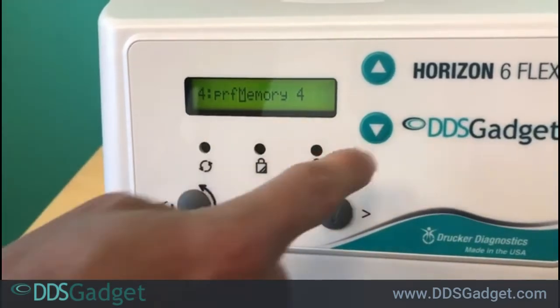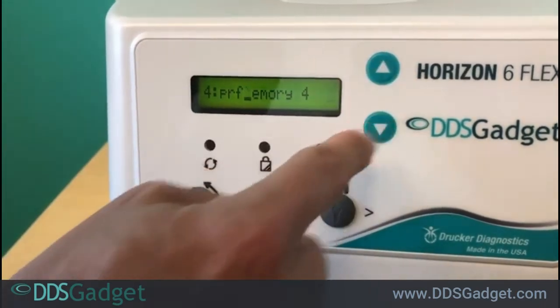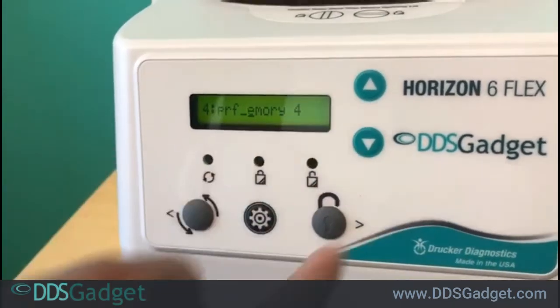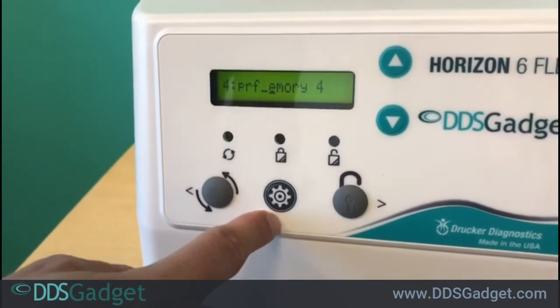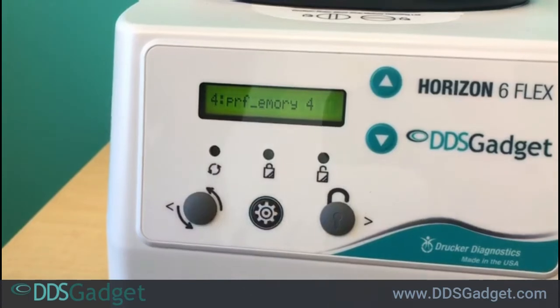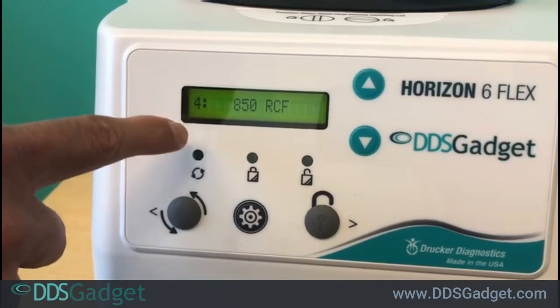If you want to skip a space, you move towards the numbers and once you get to nine you'll see there's a space. Then you can move to the next letter. Once you're done typing in all the different letters and you're happy with the name, you just press the gear button again and that will set the cycle for you.